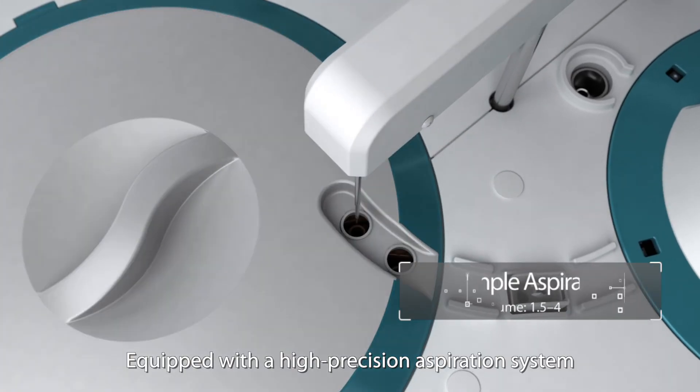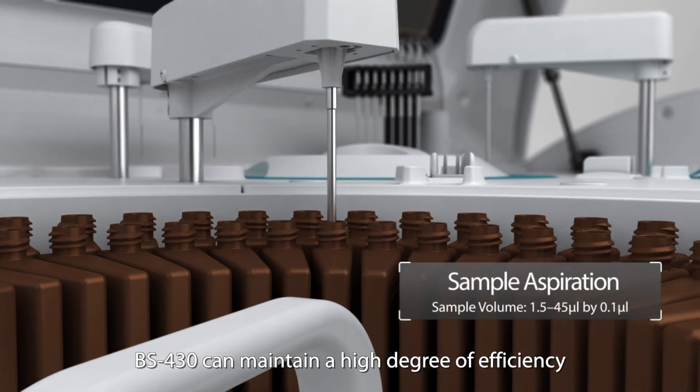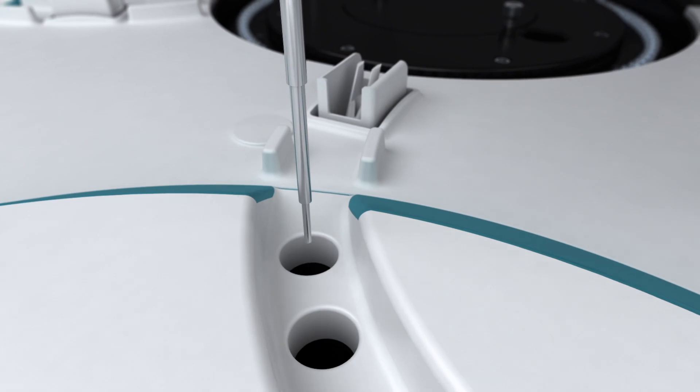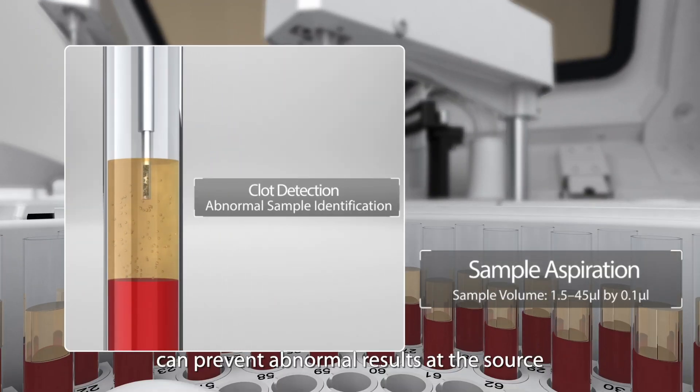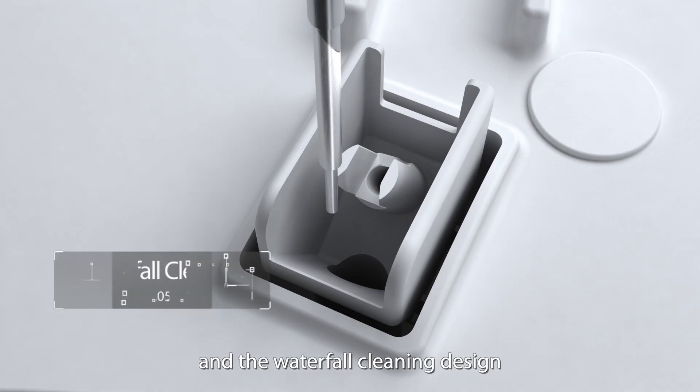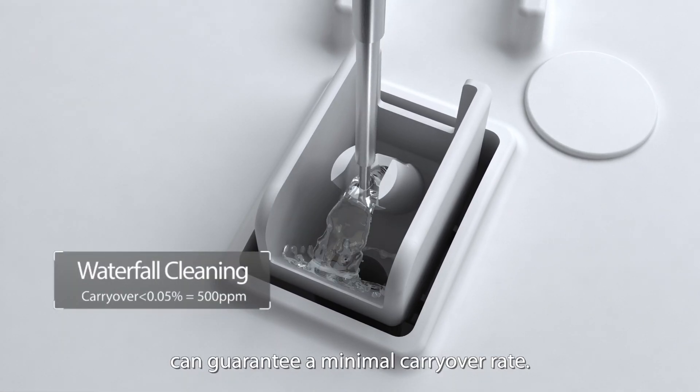Equipped with a high-precision aspiration system, BS430 can maintain a high degree of efficiency. A sample clot detection function can prevent abnormal results at the source, and the waterfall cleaning design can guarantee a minimal carryover rate.